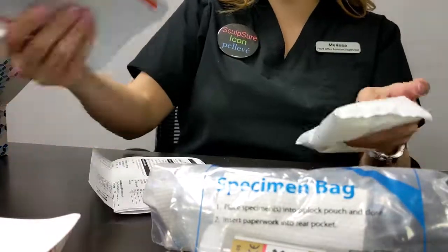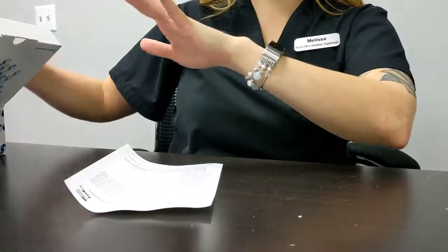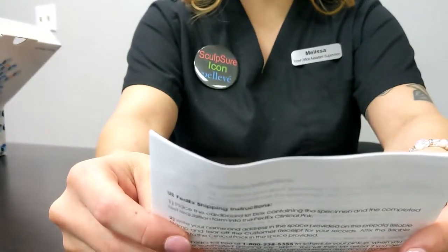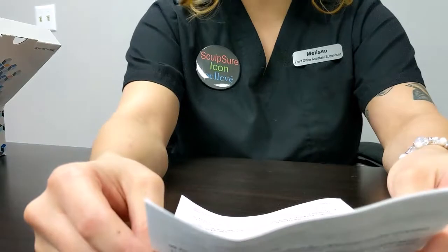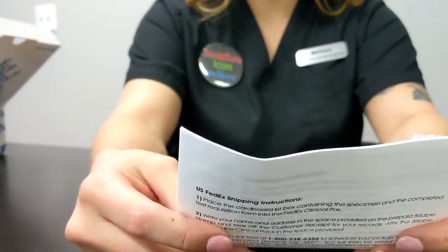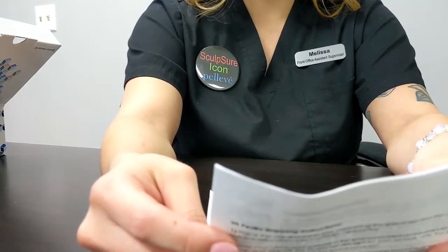What you want to do is make sure that you read all of these directions very carefully prior to collecting. I'm going to try to zoom through this for you with all the information to get you prepared as well. You want to familiarize yourself. If you're taking antifungal or antibiotic medications, please finish that course of medication and then wait 3 days before starting this collection. Please also refrain from taking digestive enzymes, laxatives, antacids, aspirin, and substances containing barium or bismuth for 2 days prior to and during the collection of the specimen, unless otherwise instructed by your physician.